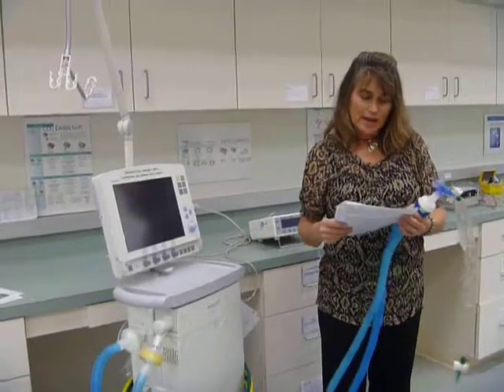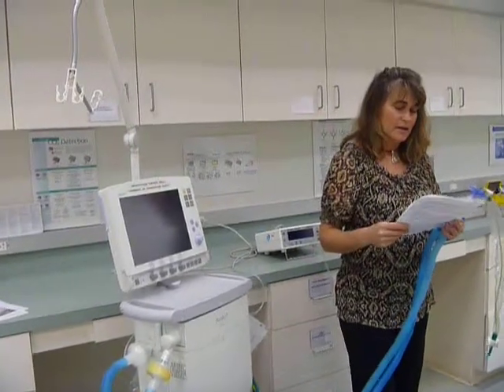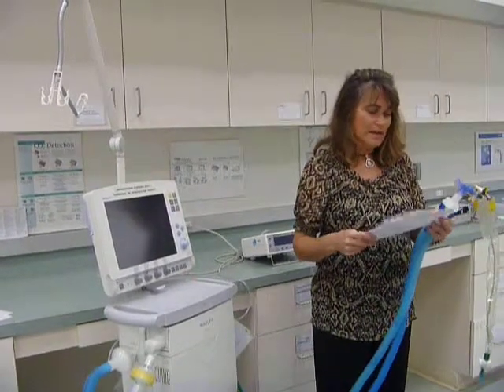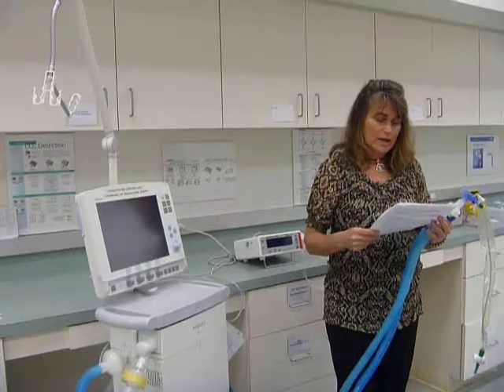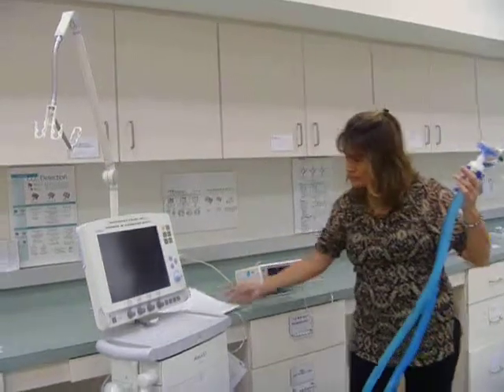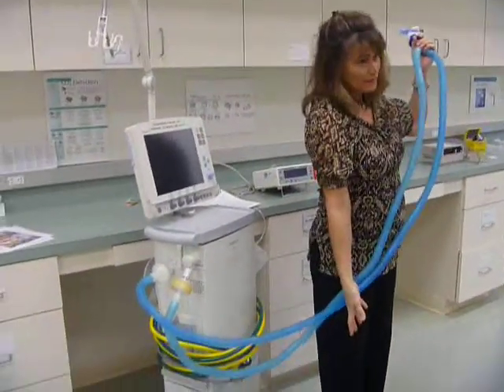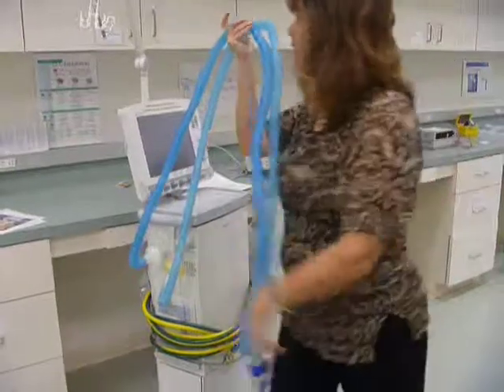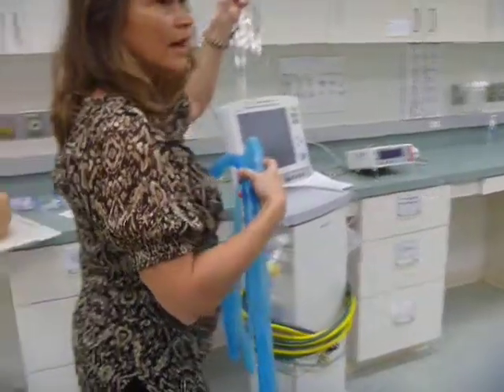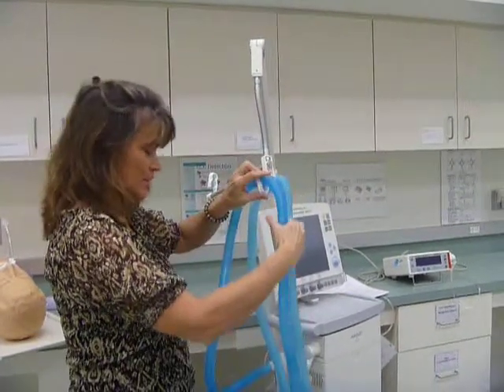How should a ventilator circuit be handled to prevent contamination? It tells you to use clean technique and only touch the outside of the circuit. The inside of the circuit must be kept free of any contamination. Handle the circuit carefully to prevent the ends of the circuit from touching any objects. So the circuit is long, and if you're my height and you're holding the circuit, one end is going to drag on the floor. So what you can use are the arms that come with the ventilators. Some of them work, this one just works by pulling on it. Some of them you have to loosen each side and tighten it to get it where you want it to go.